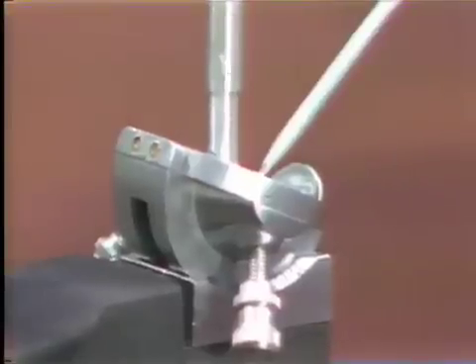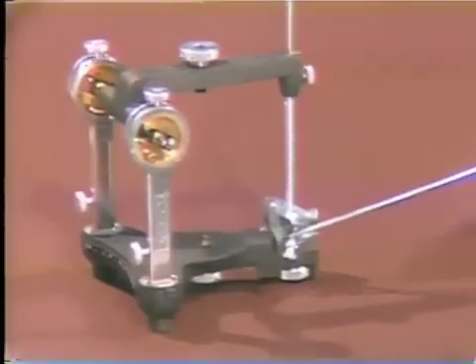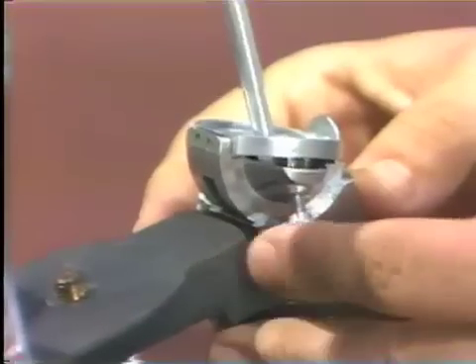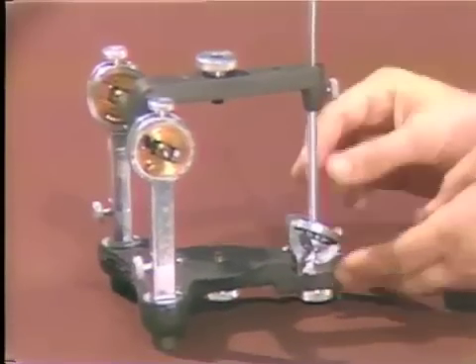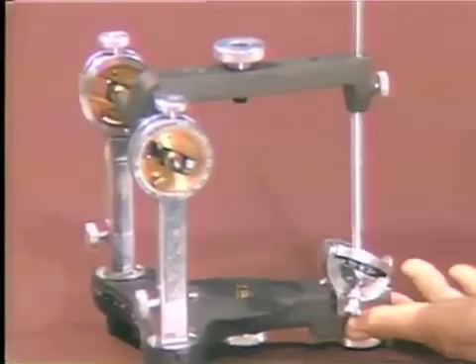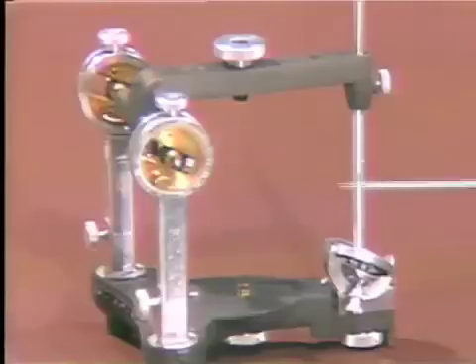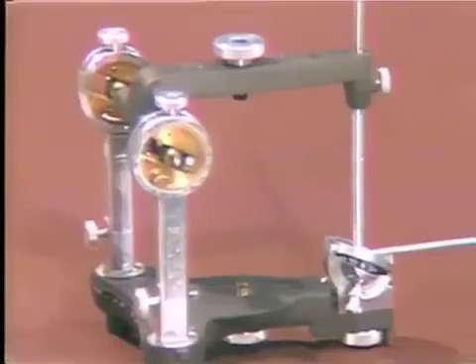The lateral incisal angle is set by elevating this platform by way of this nut bolt extension, by simply raising the articulator and gently extending this small bolt, which allows you to elevate the lateral wing of the incisal guide table. In this position, one picks up both the anterior-posterior component and the lateral component of the incisal movement. We have therefore discussed two of the five elements in Hanau's Quint: the condylar mechanism, completely dictated by the patient's protrusive check bite, and the incisal guidance, which can be set from the arrangement of the upper and lower anterior teeth.